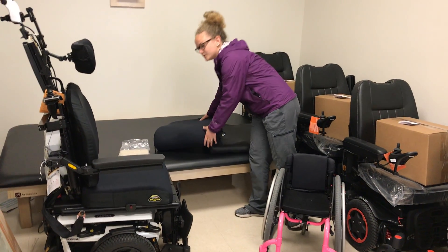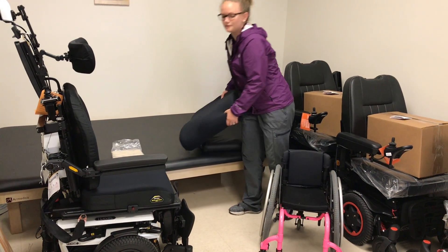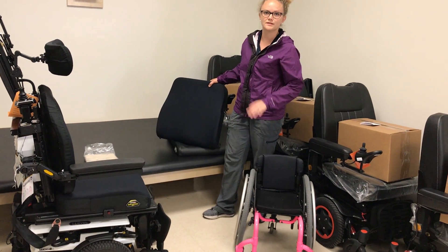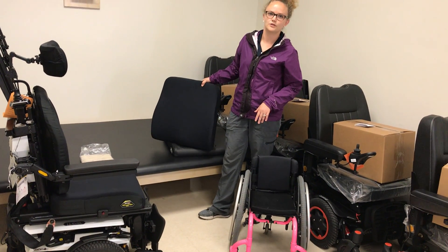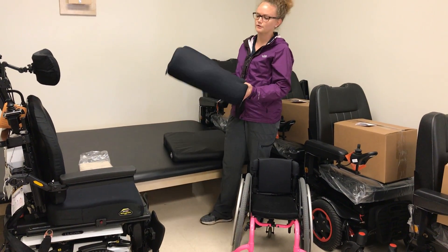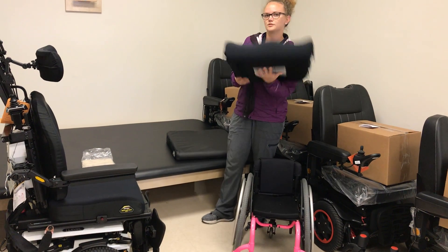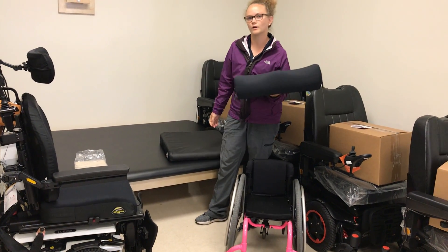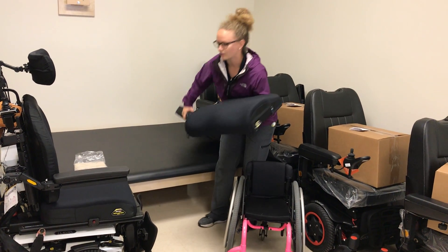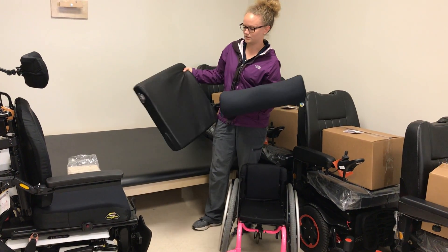Also, as I mentioned, seat-to-floor height is from the floor to the seat pan. So the overall seat-to-floor height can definitely be affected by cushion choice, and that's just something we want to consider when we're making all these decisions.